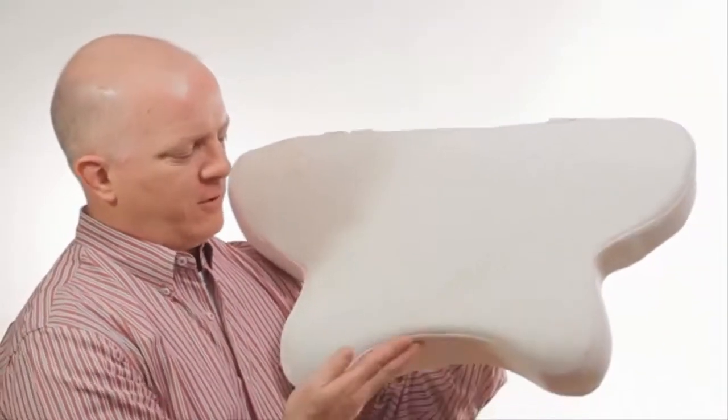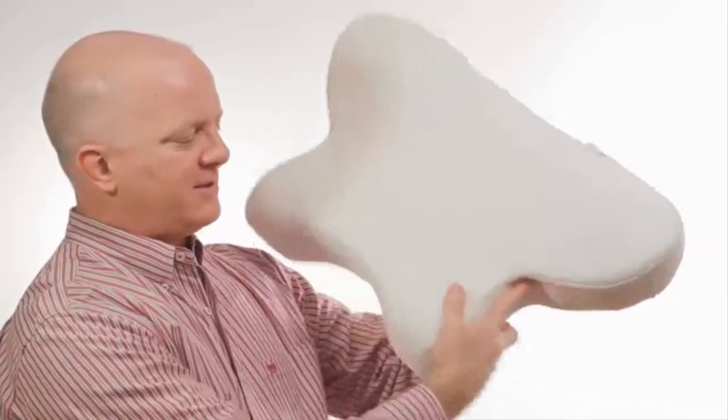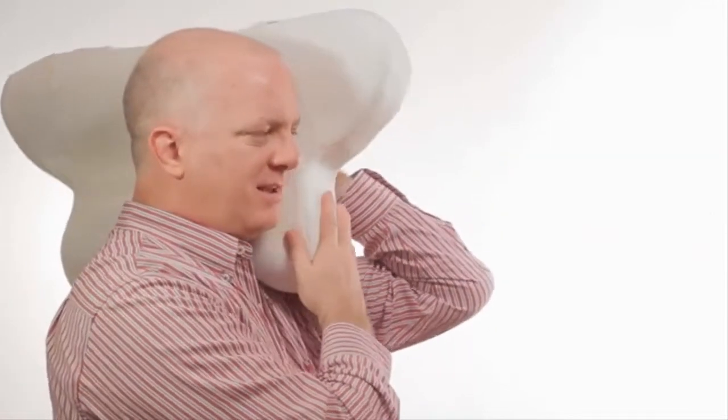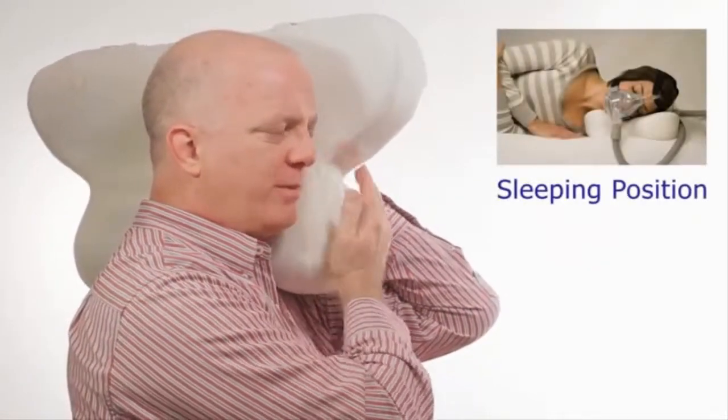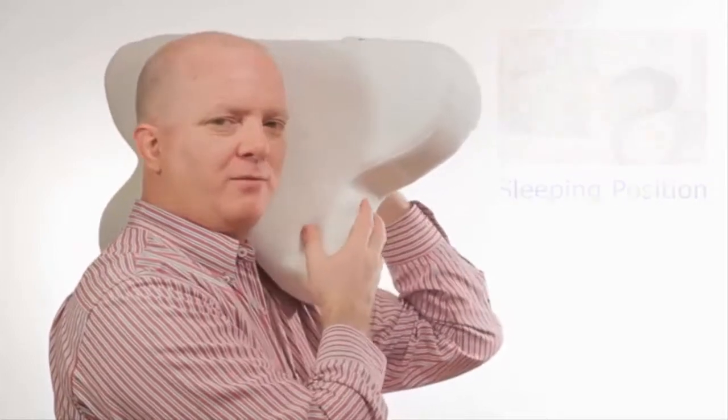It's a side sleeper pillow. A groove is cut for the shoulder and for the mask, and basically every part of the pillow that interferes with the mask has now been removed.